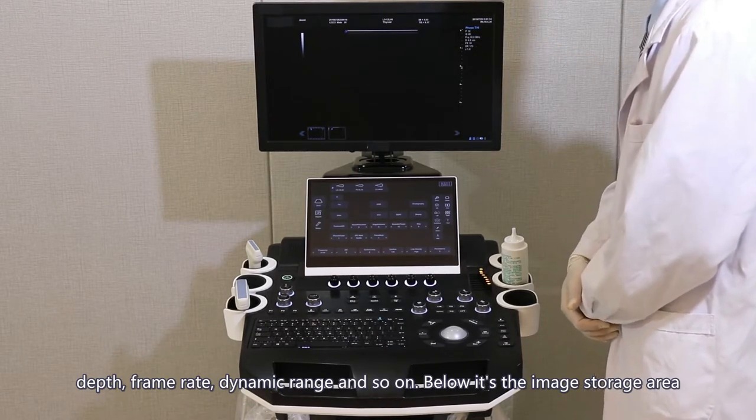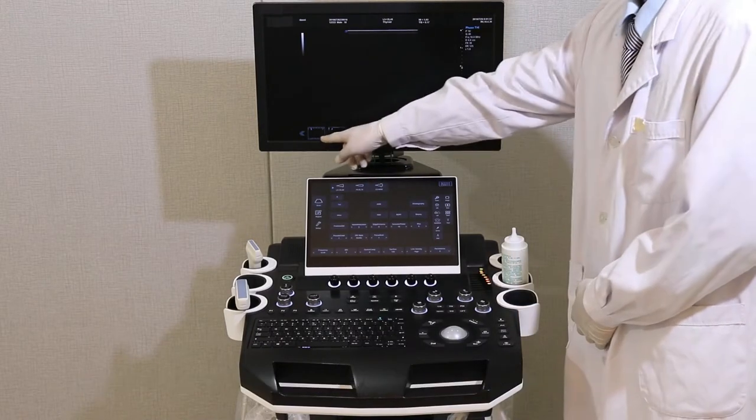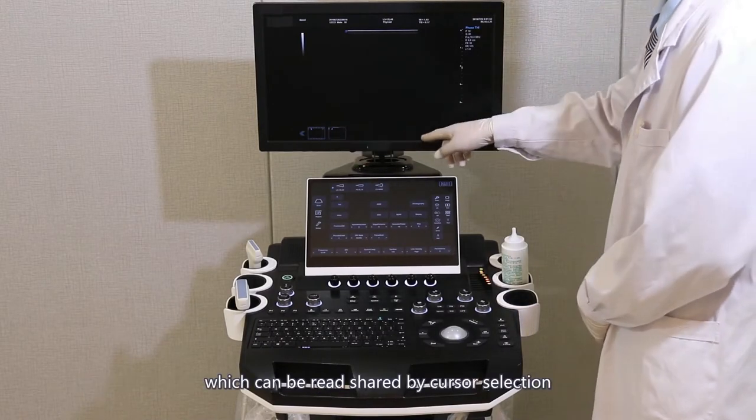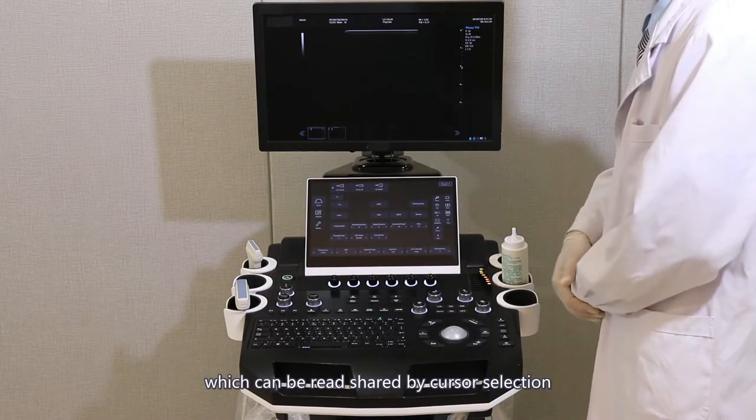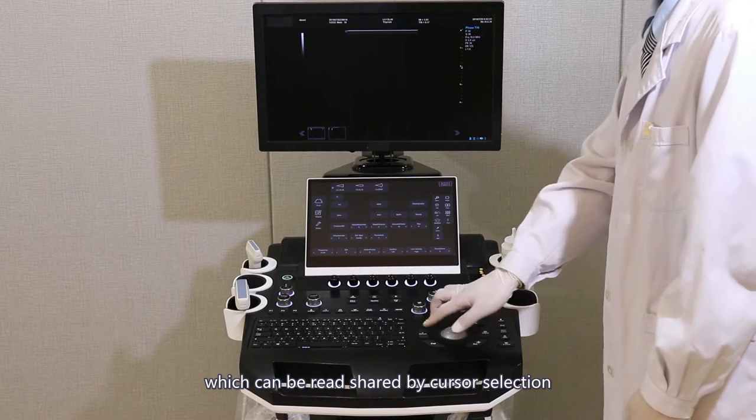Below is the image storage area, which can be read, shared, and viewed by cursor selection.